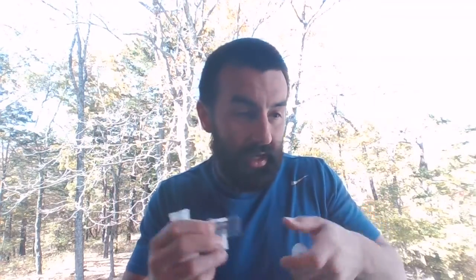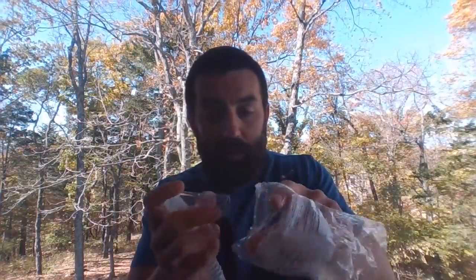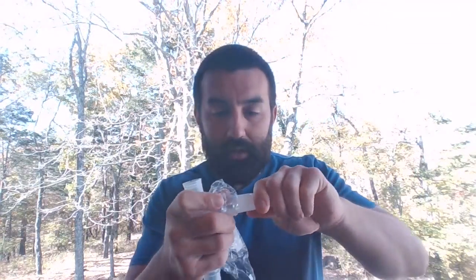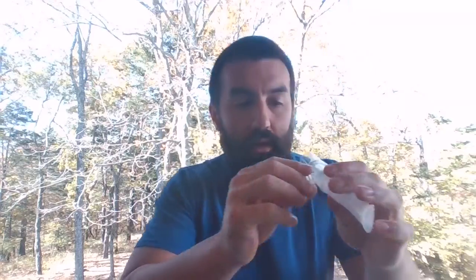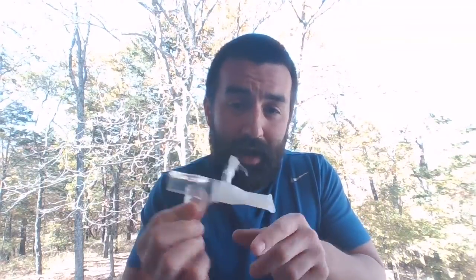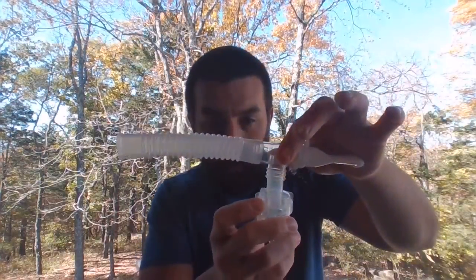When you get this set up, you'd have your T-piece, your mouthpiece, and corrugated tubing. All we do is take that package, stick your mouthpiece in, and you can use scissors. You can do this with a glove too. A lot of people do this with a clean glove. I rip my plastic so it's blocking this mouthpiece, because I don't need a mouthpiece if I'm running a trach. I'm going to hook my corrugated tubing up like this, and hook my neb up.